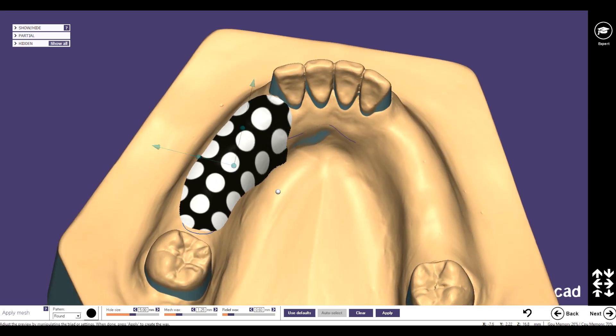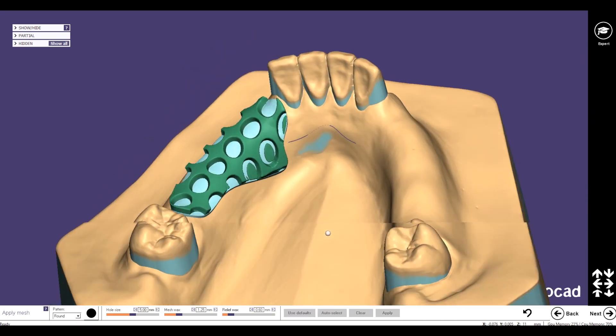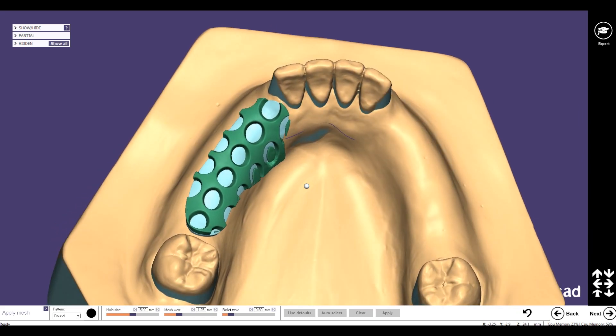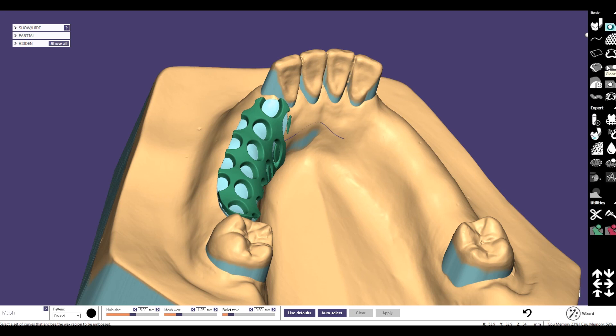Now we place the retentions so that they build a row. We can use this middle line for our retentions, and then we have to delete all the other parts which are not looking like lower jaw retentions. I click apply, and we can see we have to do a lot of rework to make them look like real lower jaw retentions.